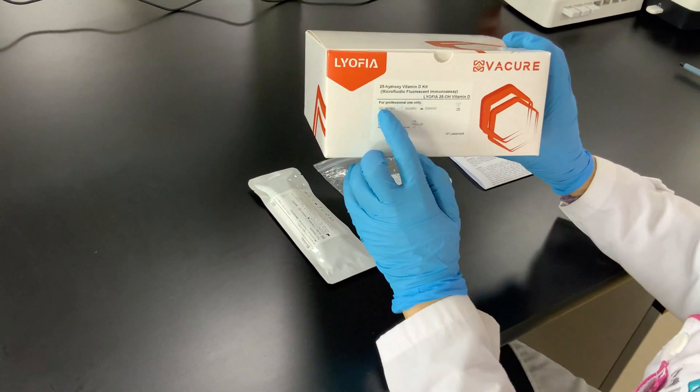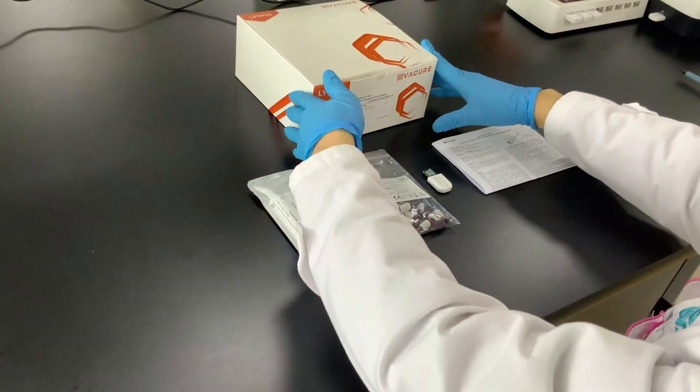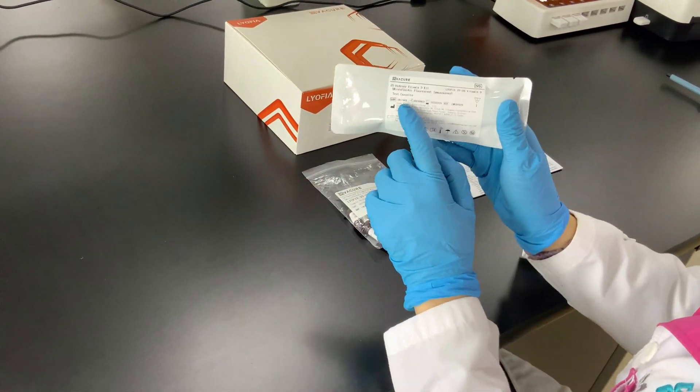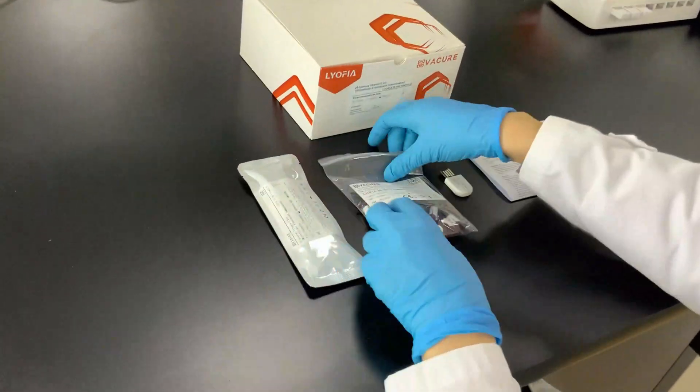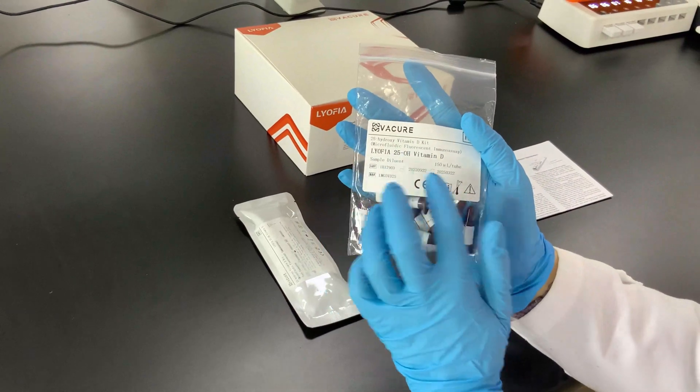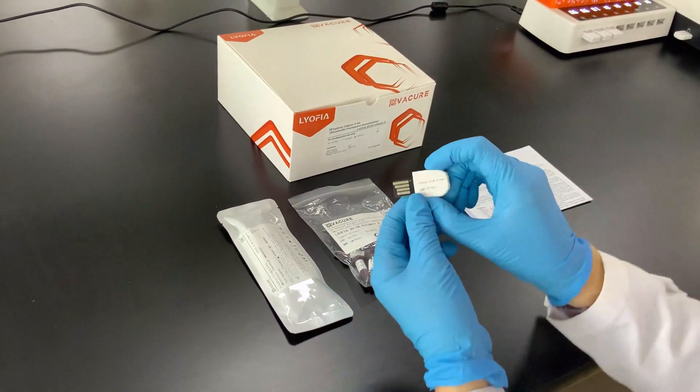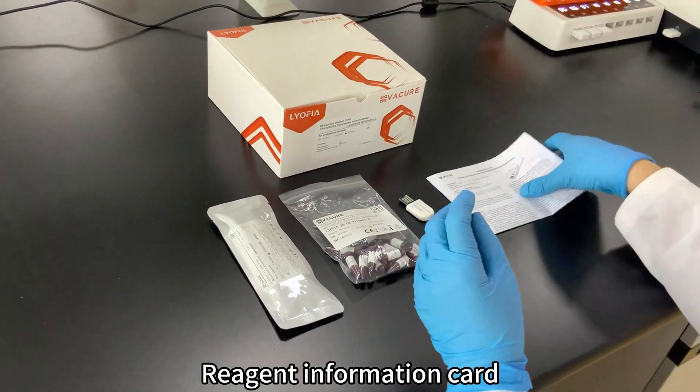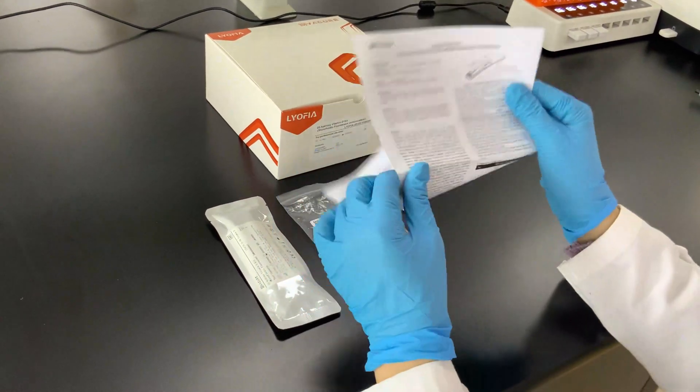The kit contains a test cassette, sample diluent, reagent information card, and instructions.